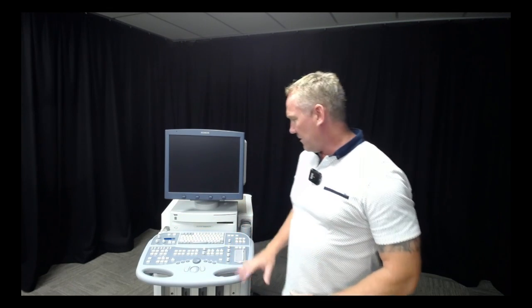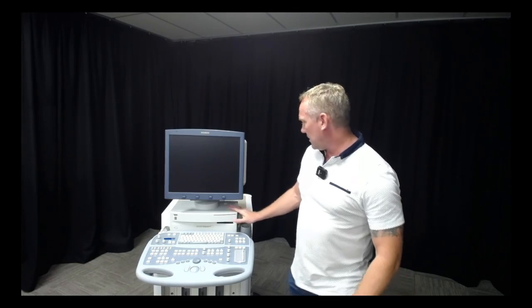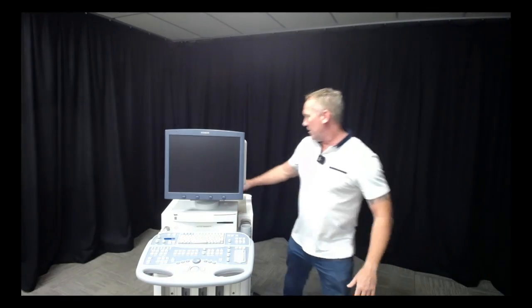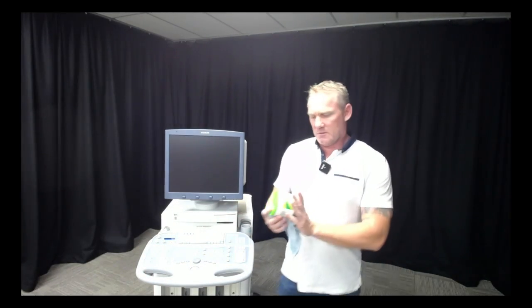Hello friends, Tony from Echo Guru returning again. We've had a good look at the machine, done a big tidy up, and given it a good polish. For most of the machine I've used some multi-purpose cleaner and a damp cloth.